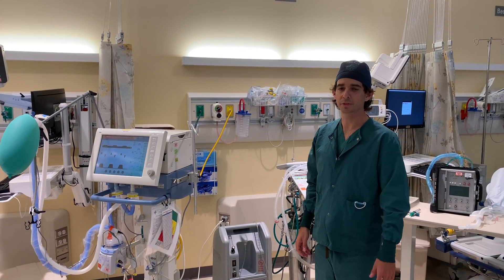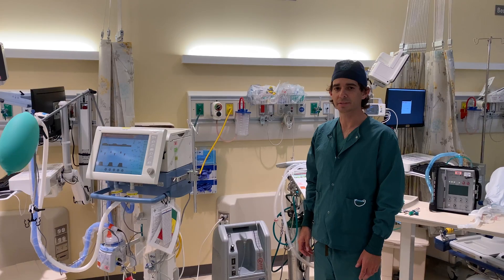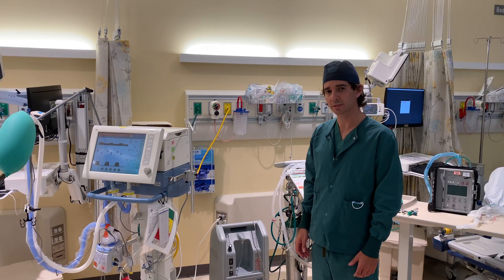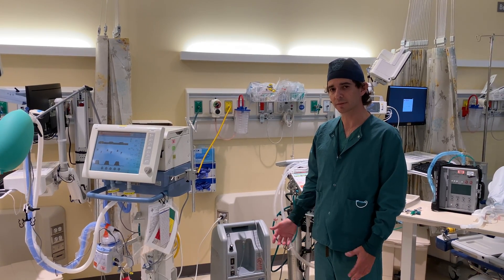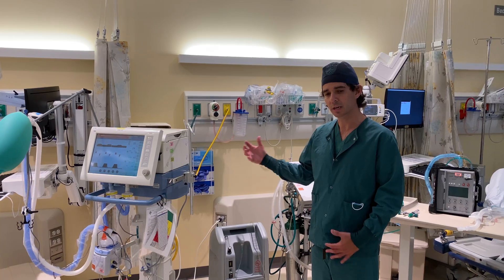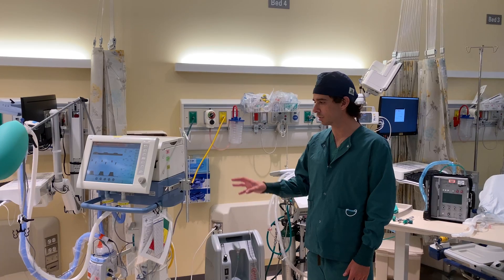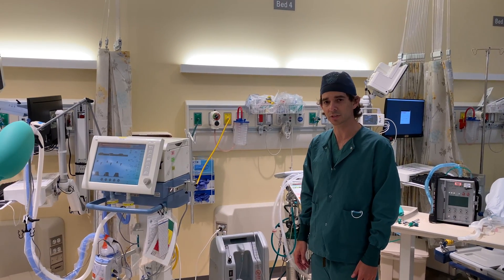This is Mike Lipnick from the University of California San Francisco. I'm an anesthesiologist and intensivist and I'm going to walk through a couple of ventilators here to demonstrate some features, some key differences between transport ventilators and what some people might consider a more traditional ICU ventilator setup. We'll run through oxygen supplies, the consumables, the circuits, and humidification systems.